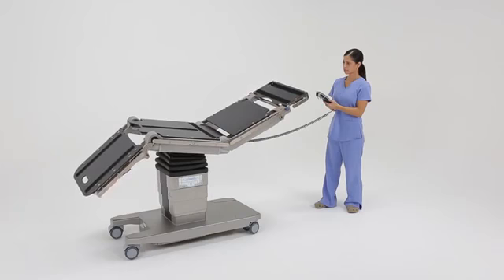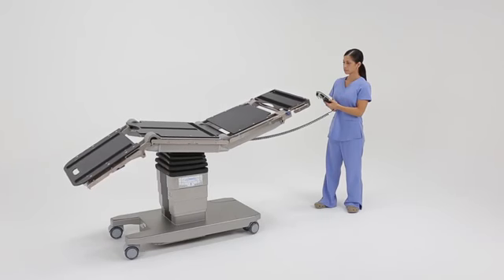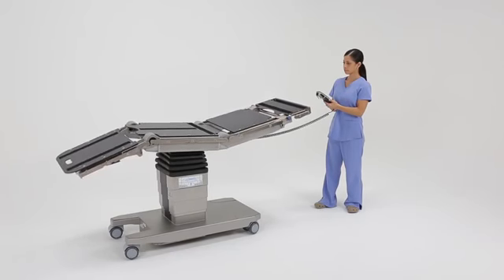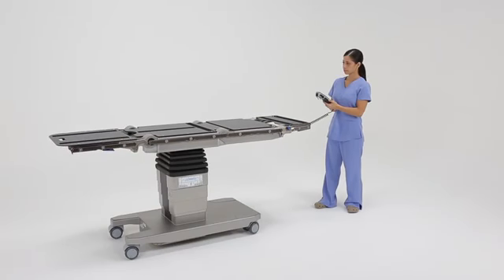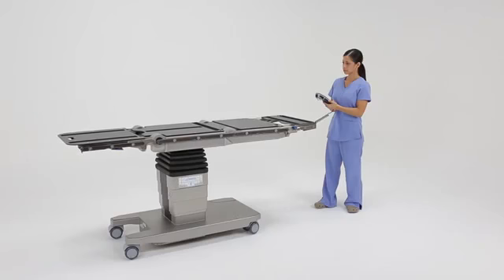Due to Trumpf's advanced electronics and the electromechanical motors, the return to level feature is safe and efficient. Simultaneous movement of sections improves patient comfort and optimizes OR time by quickly bringing the patient to a level state and ready for transfer.